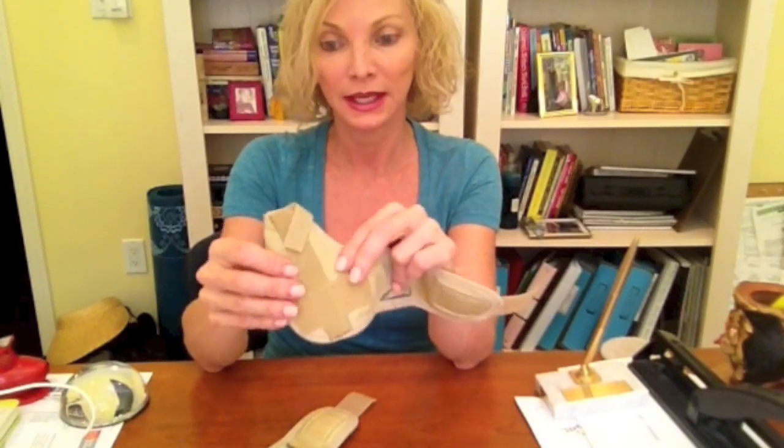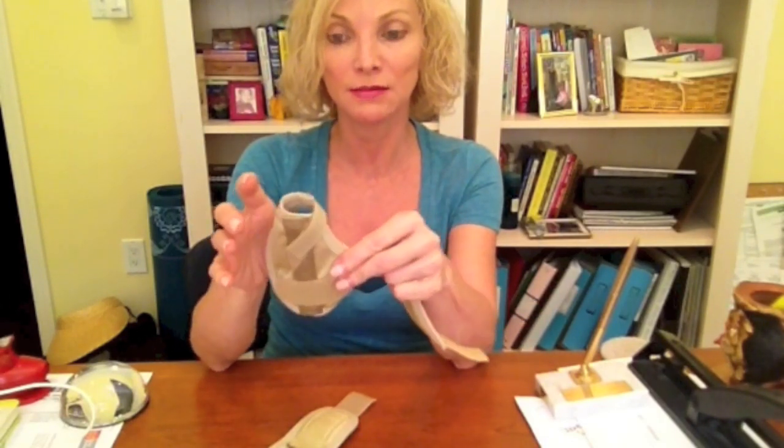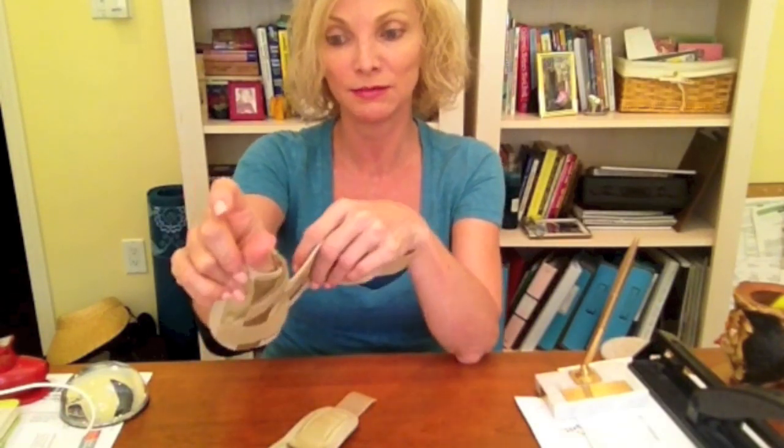These are beige, so they go with a lot of different clothing and they're not black, so they don't really stand out. I got these at a place called Northwest Medical Supplies and ordered them online — they came really quickly. They have a piece of Velcro at the top, so you just snap that together, slip your thumb through, and they wrap around and they're done. These also ran about close to $30 a piece.